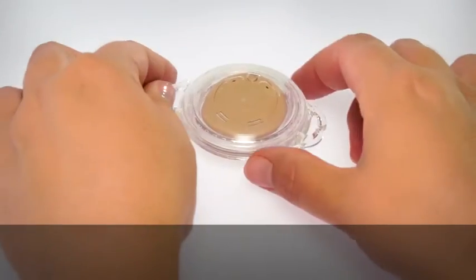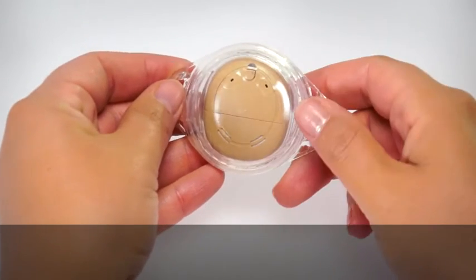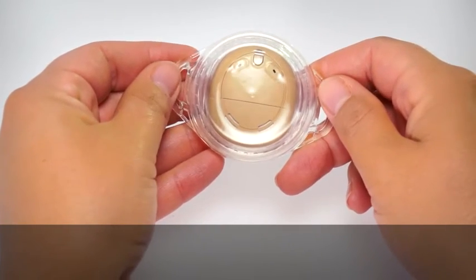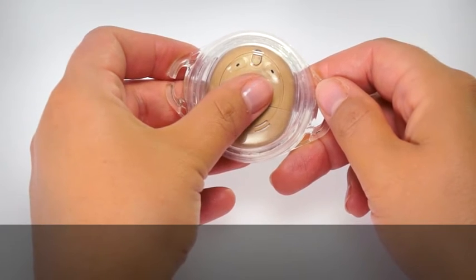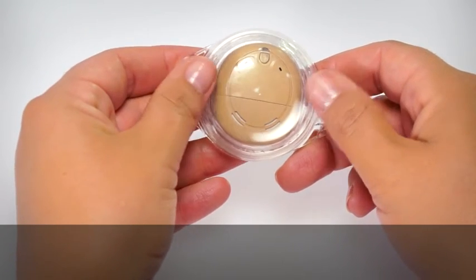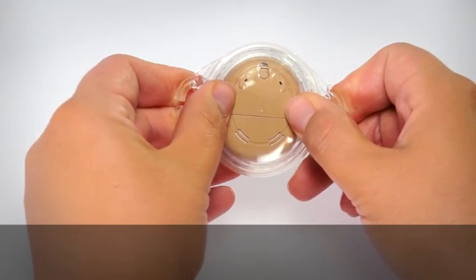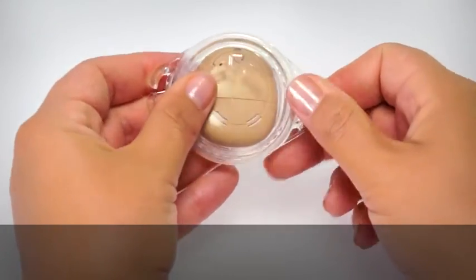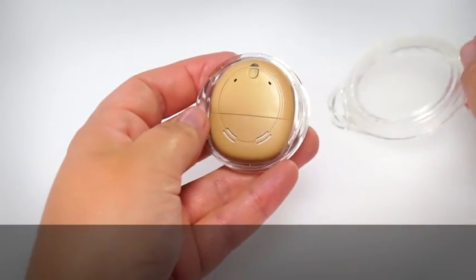Open the AquaPlus top cover by pressing on the side tabs or the device itself. Remove your Kanso.